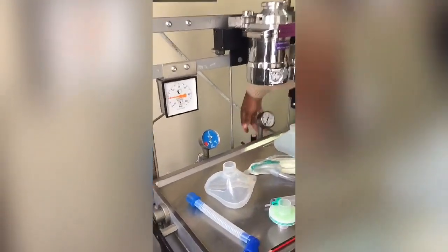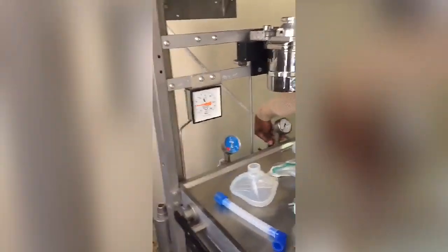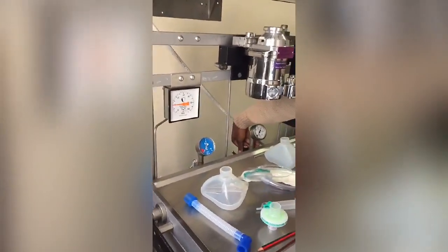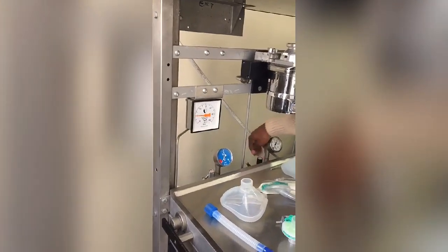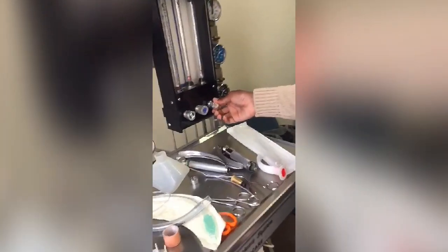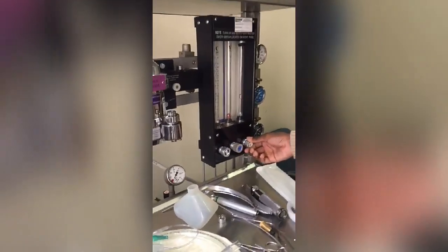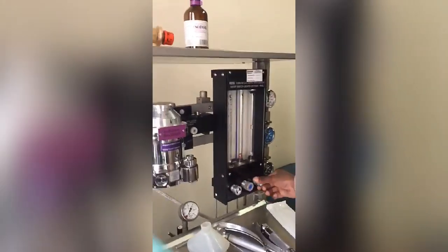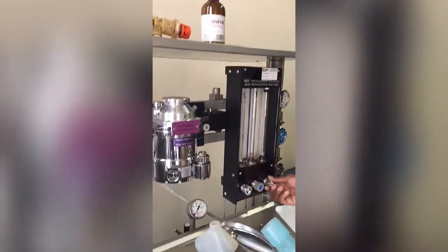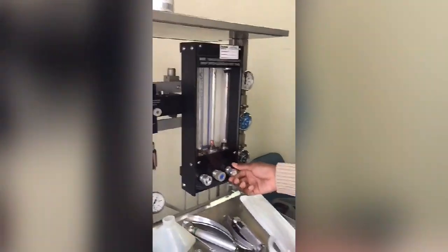Then go for the oxygen cylinder: open it, listen for leaks, and make sure the gauge reads at 50 bar. After that, don't forget to close the cylinder itself.